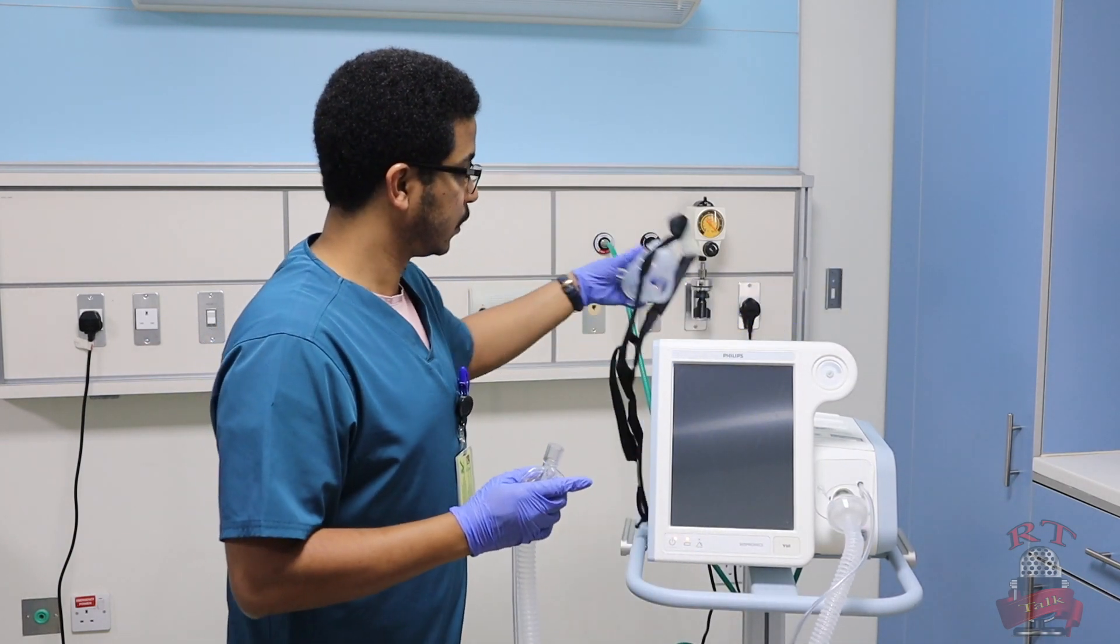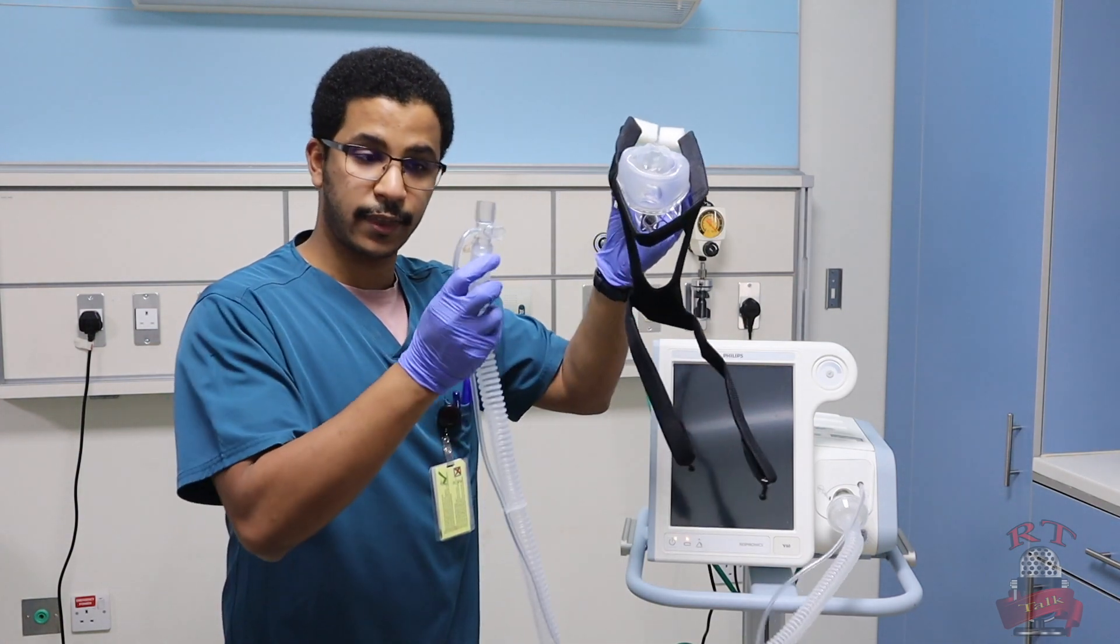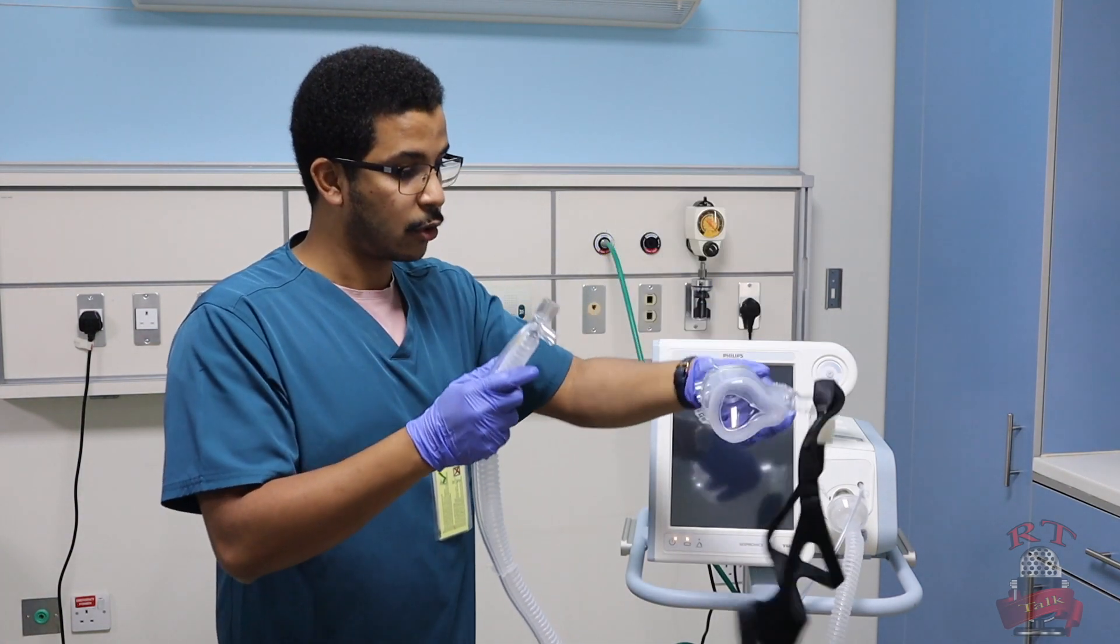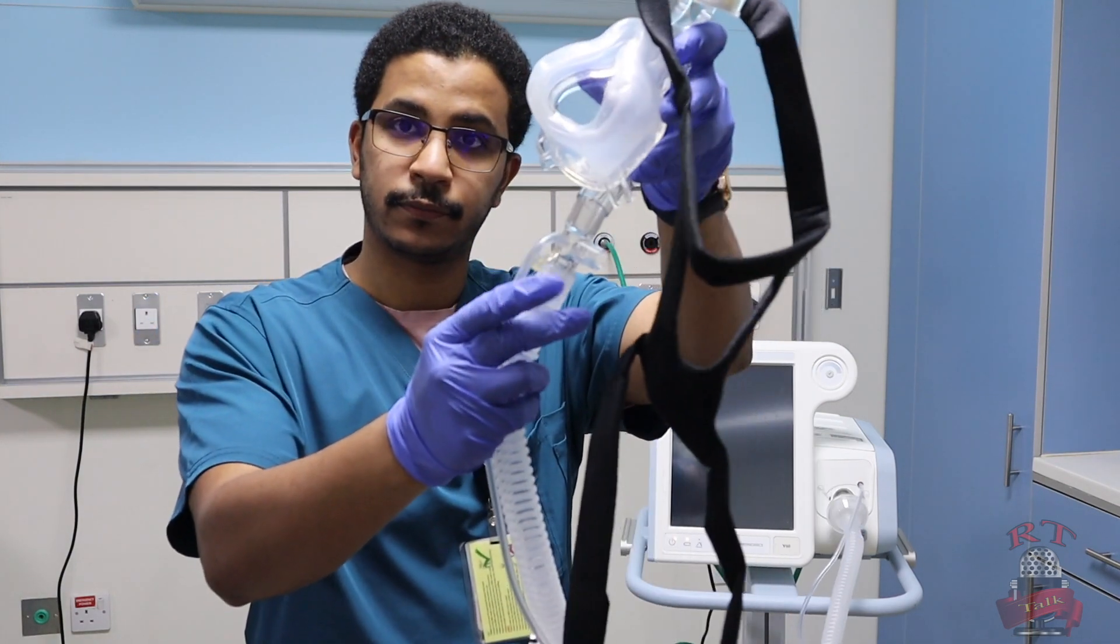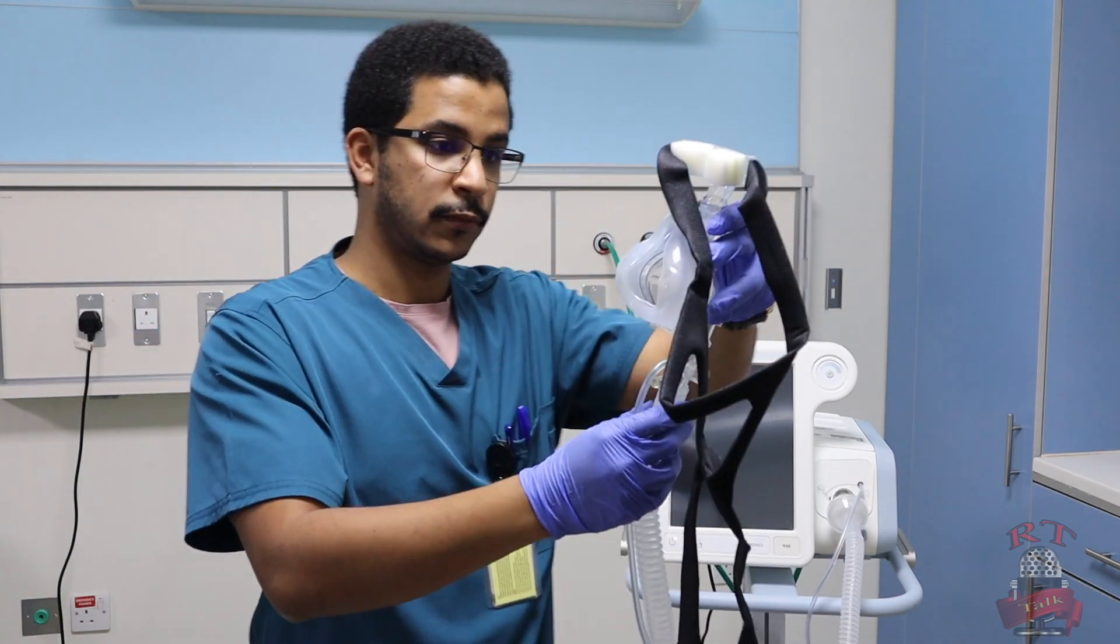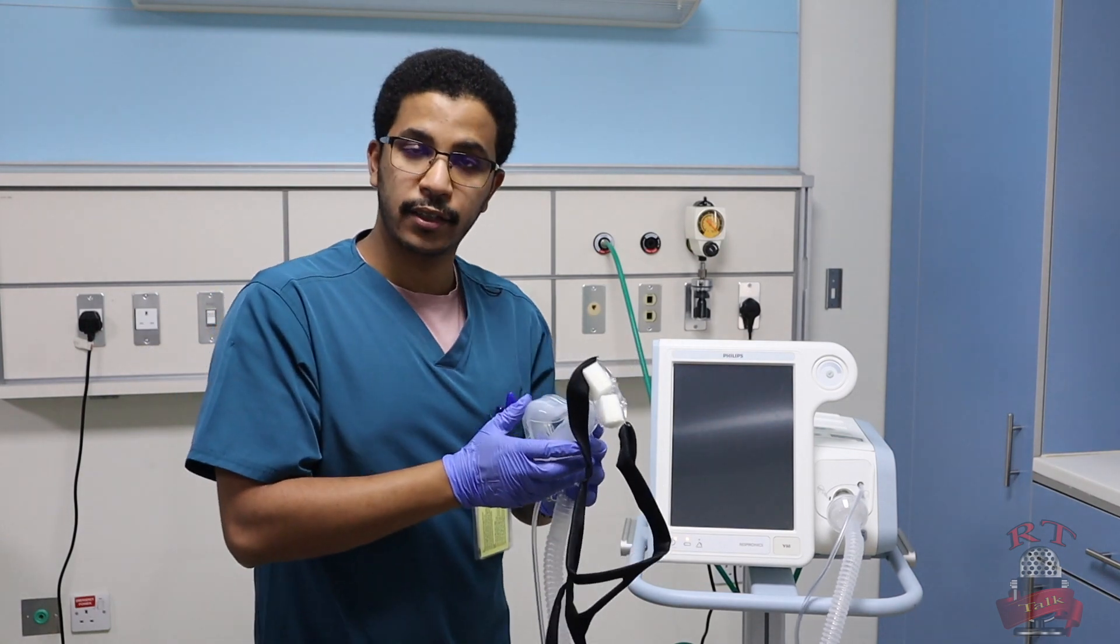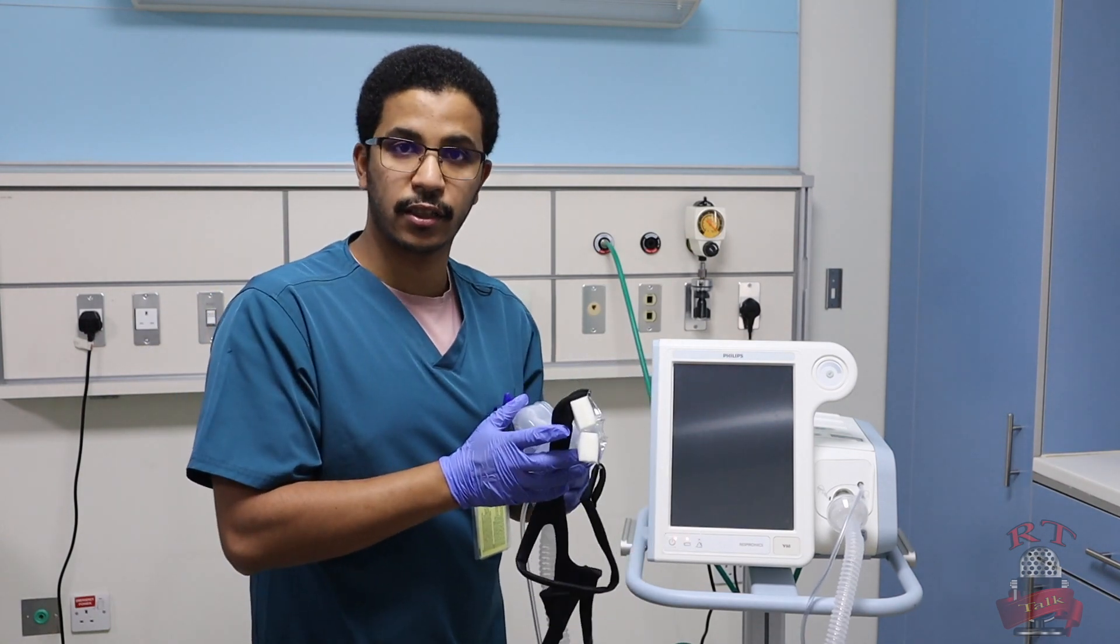The third point is your interface. You will connect the circuit, the BiPAP circuit, with your interface in this part as you see. So now we are ready to set our settings in our machine.